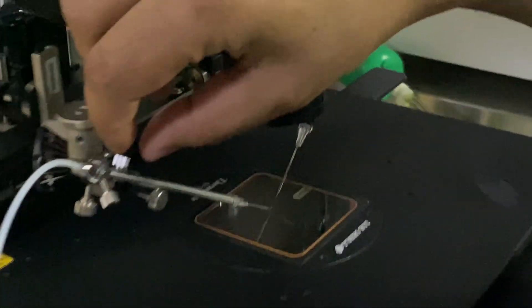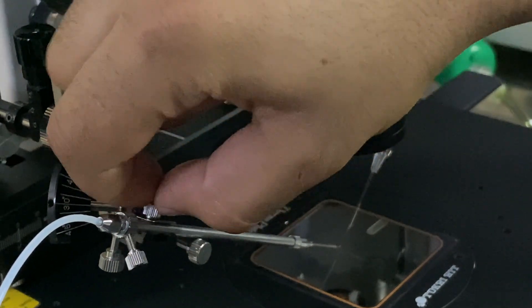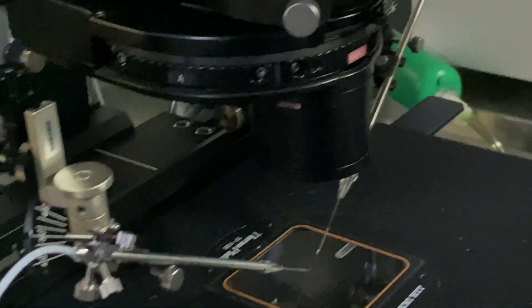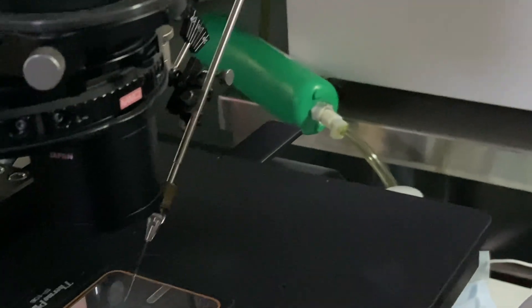...we have a knob here, which is supposed to tighten. So I will tighten this knob so that they don't move during the procedure. Similarly, I will do the same with injecting. So once it is done, then they are fixed.